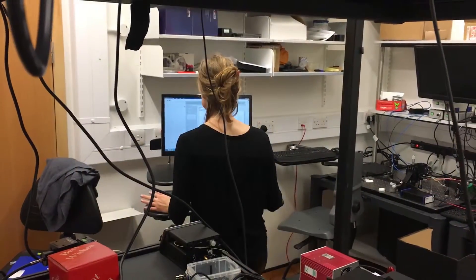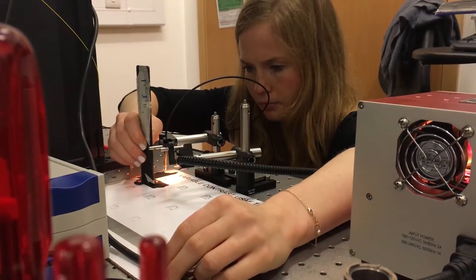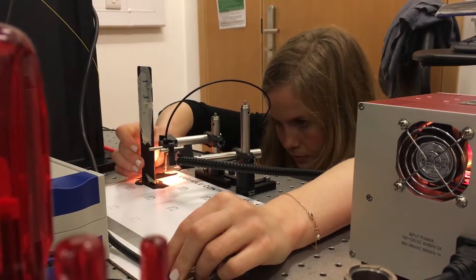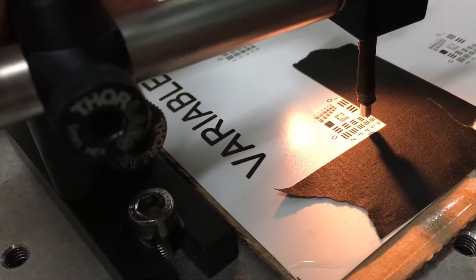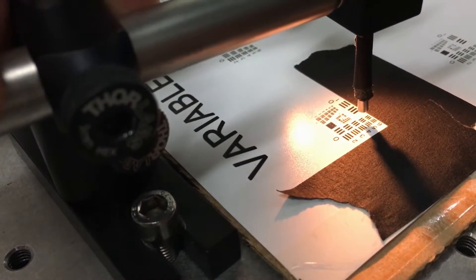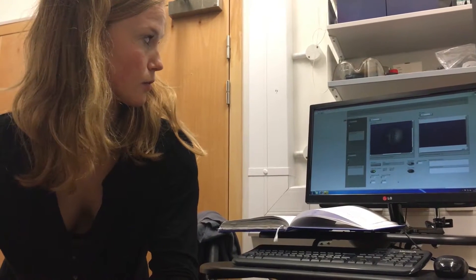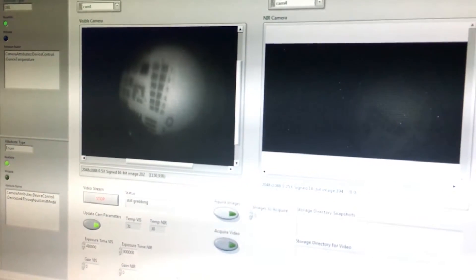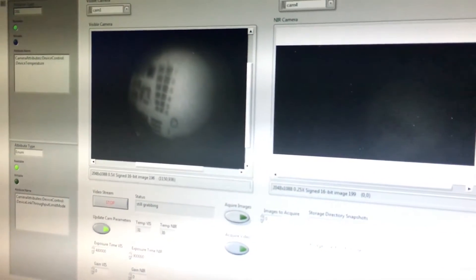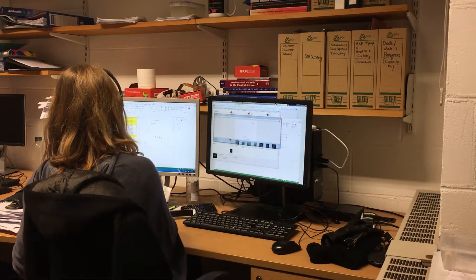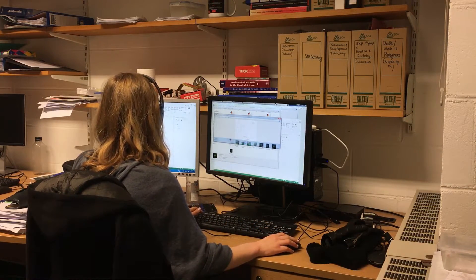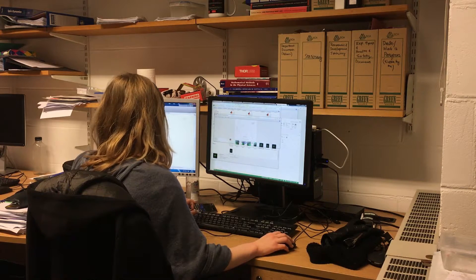This morning I was acquiring some images to determine the resolution of the endoscope that I've built. I've been imaging a resolution test target — a USAF target — to determine the smallest feature which I can resolve on my endoscope. This afternoon I will be analyzing this data: writing code to extract the different features from the image and plotting them to have a nice visual representation of the data.